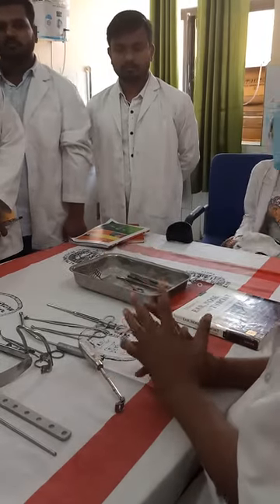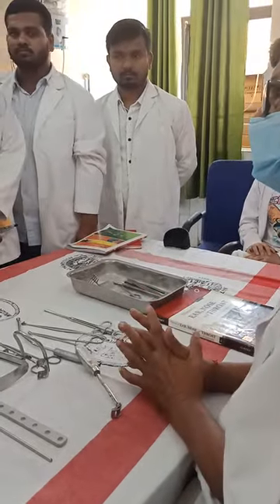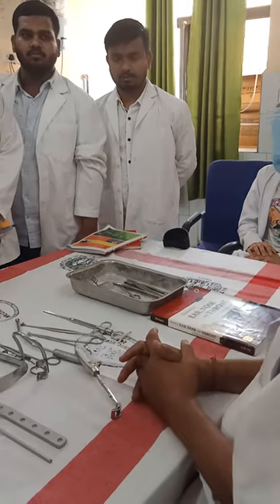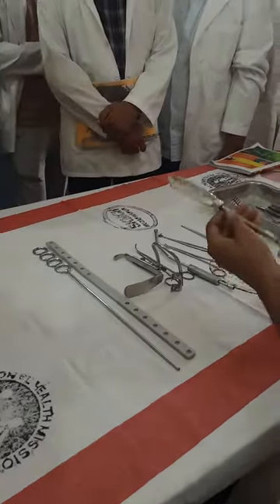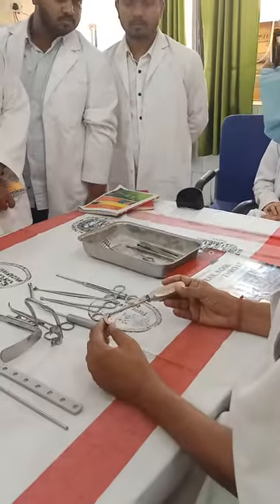These are the methods by which we confirmed adenoid hypertrophy. How do we do it? This instrument is advised — it is called a curette and guard.